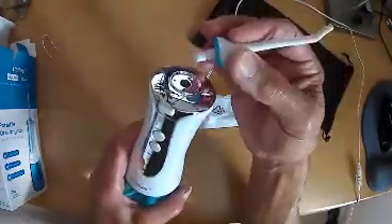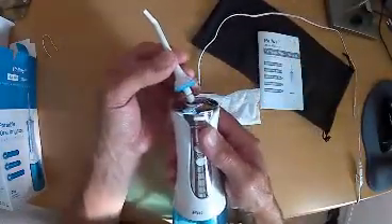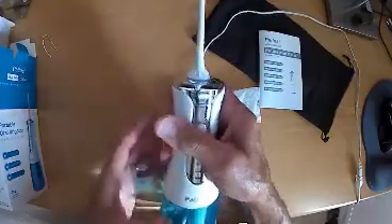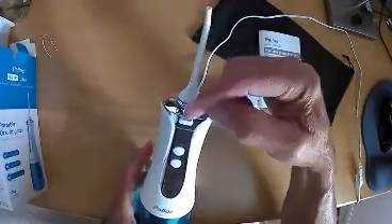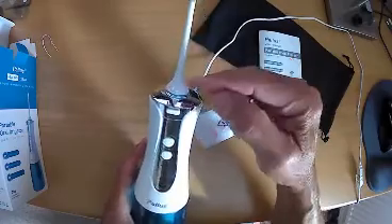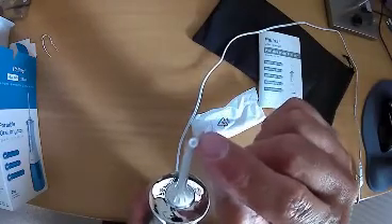To fit the jet nozzle it's very simple. Take the required nozzle, press the small button at the top, insert the nozzle and let go of the button. It's then retained and has a particularly good silicone seal around the top to prevent any water coming out of that area — obviously we want it to come out of the nozzle at the end.